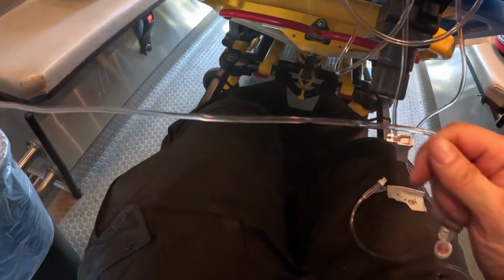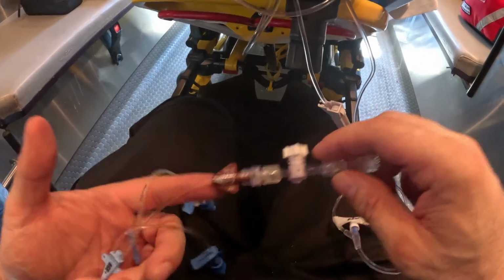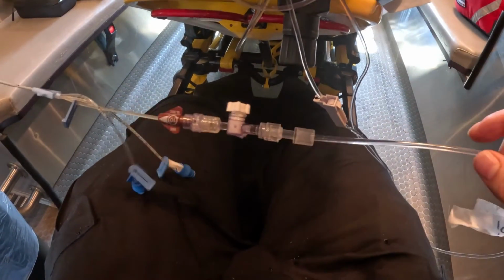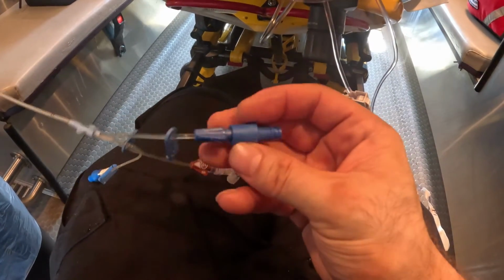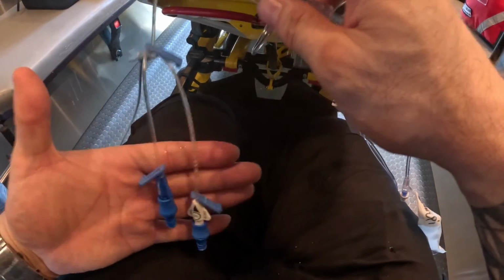Usually what I like to do if I have somebody on the central line, and I usually do that in the hospital as well, my recommendation is this: if you're not transducing and you're not giving blood, I use the distal port that comes out at the very tip here for my pressors. So this would be my pressor. So all my pressors like dopamine, my vasopressin, my norepi, my epi are going to be compatible, and they're going to be running through that Y-site. The distal port is 16 gauge. The proximal and the medial, these two ports are 18 gauge, and I have a video on the triple lumen.